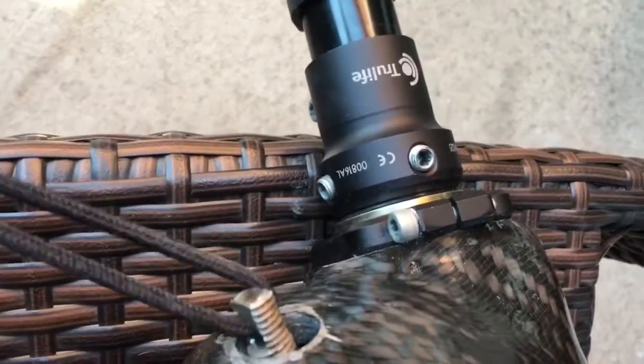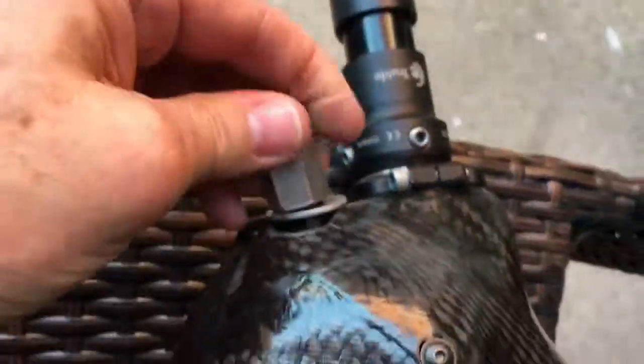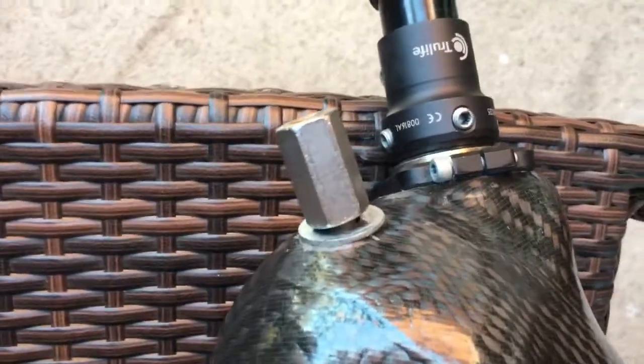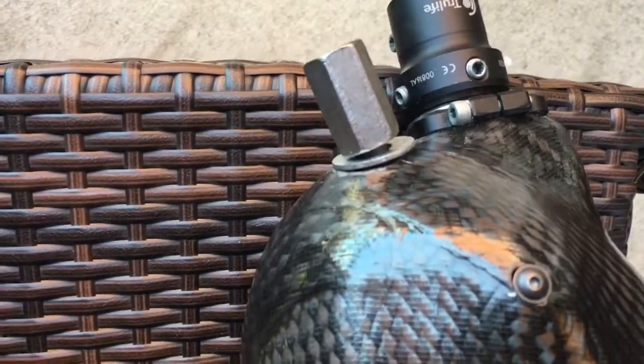The cord comes through and it pulls this bolt through. Then I run a washer on there — I've had these washers glued in in the past, but this one's not. I start that thread just a little bit until I can pull it out, and then I just crank this up, and then literally these are bolted to me.